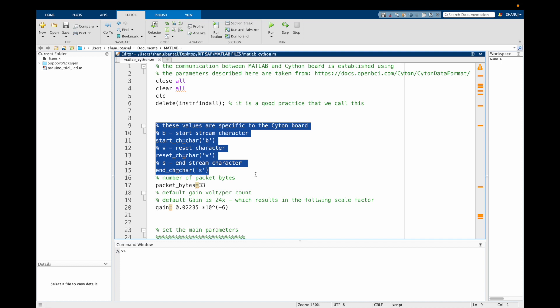Now the chipkit on a 32-bit board does not go through a reset cycle when its serial port is open, so it's possible to connect to a 32-bit board and not know its state. In this case, the terminal or application should write a character V to the serial port, which causes the system to reset its state to default values. Therefore we have now defined the characters B, V, and S which we are going to call out later in our code.